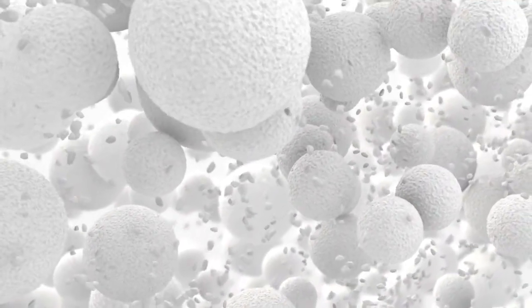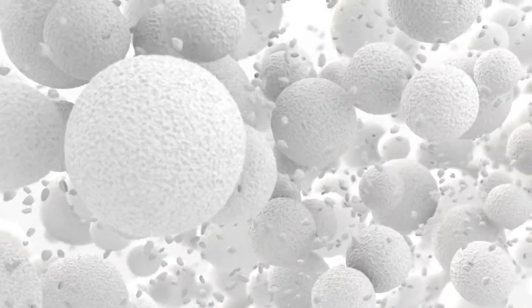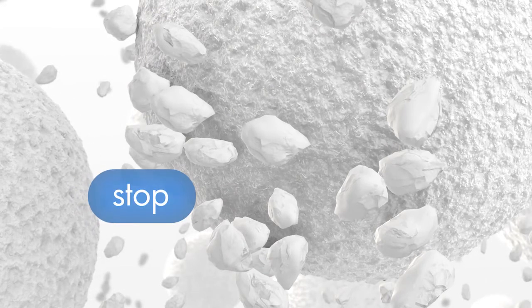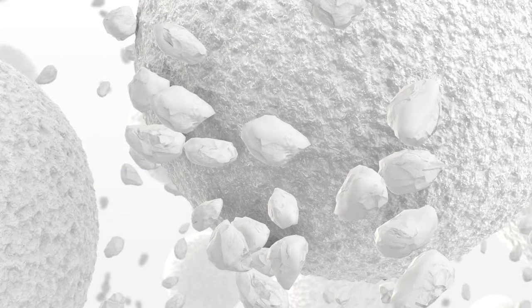Without the application of force, the mixture of spheres and smaller primary fillers lead to a directed stop of the material, and thus to a high level of stability and slump resistance.